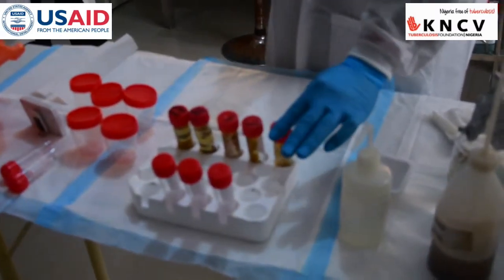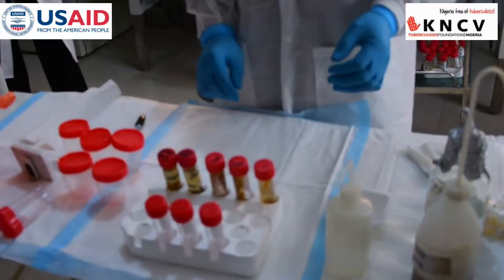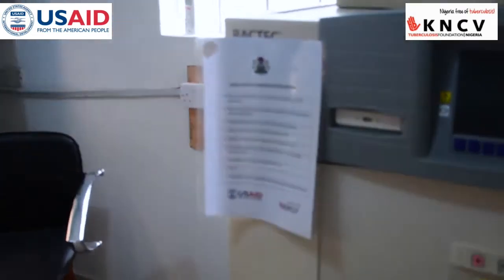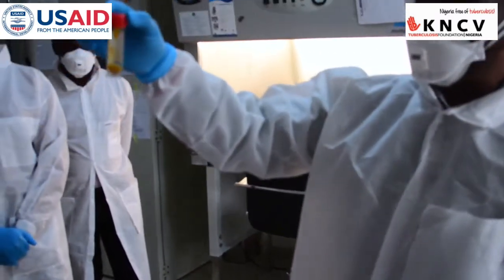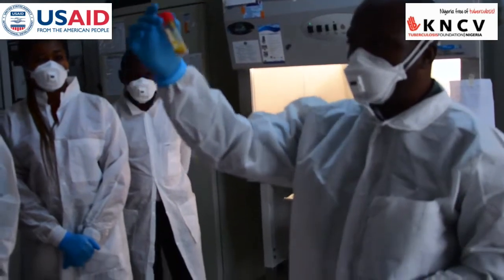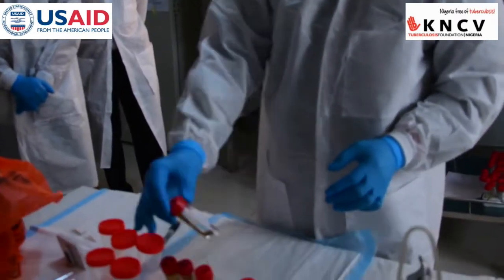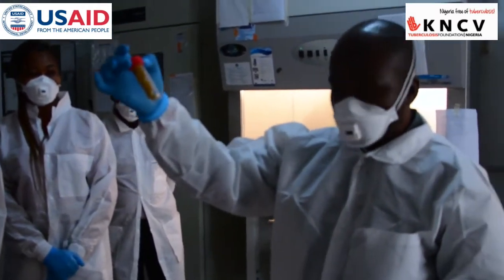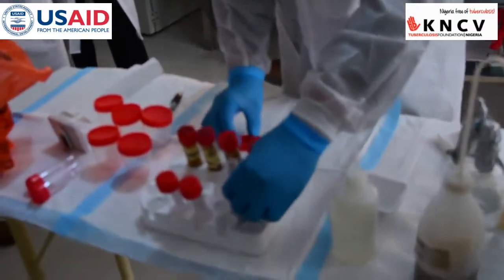I am processing from the first sample, and we will look at our SOP. The SOP says to take a pea-size piece of the stool sample, about one gram, into a sample container. This first sample is in liquid form, so we will skip the first procedure and come to the second sample, which is in solid form. We will collect one gram of this sample into the corresponding container.